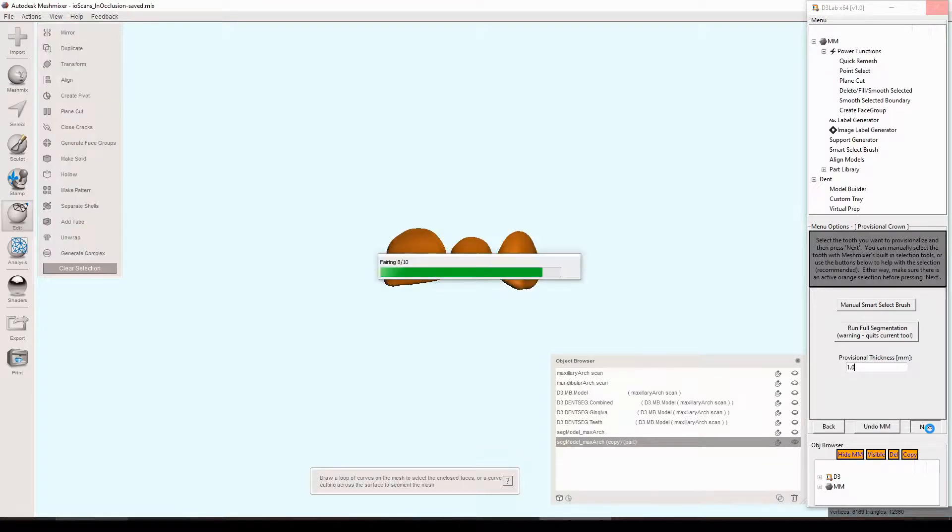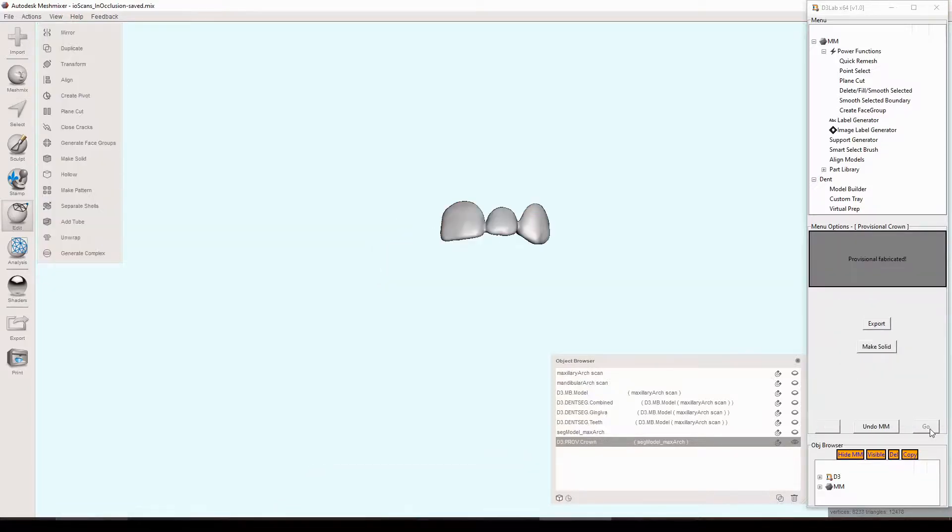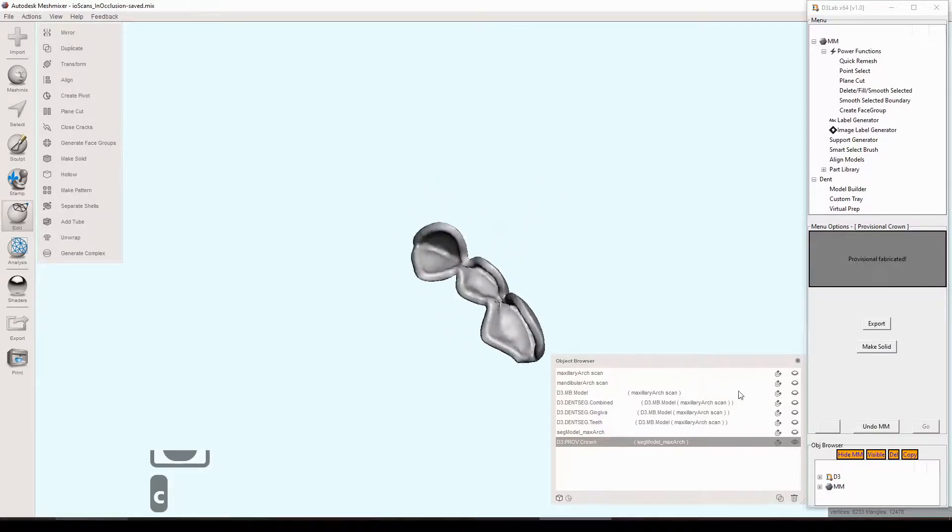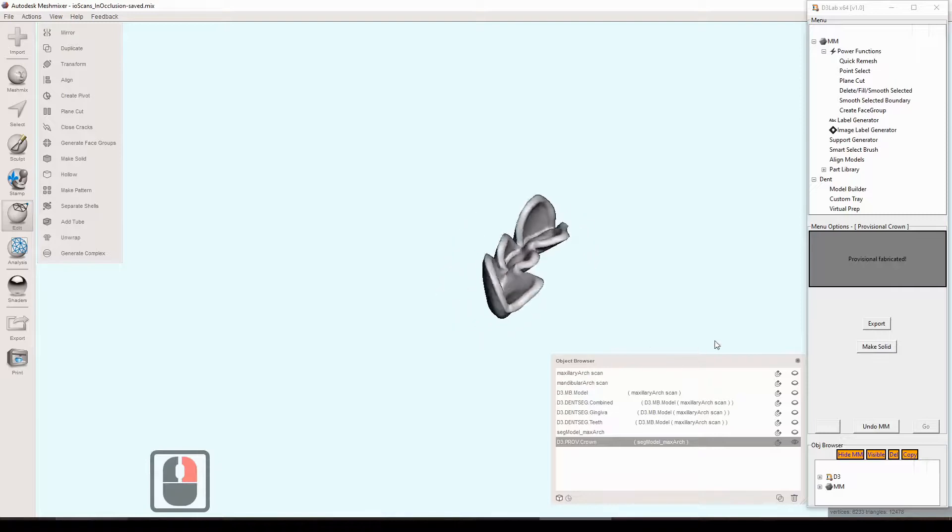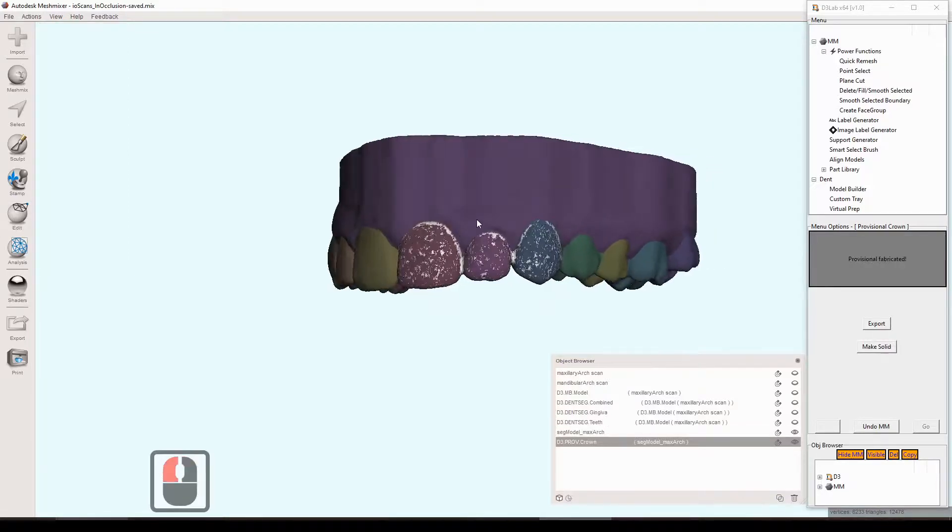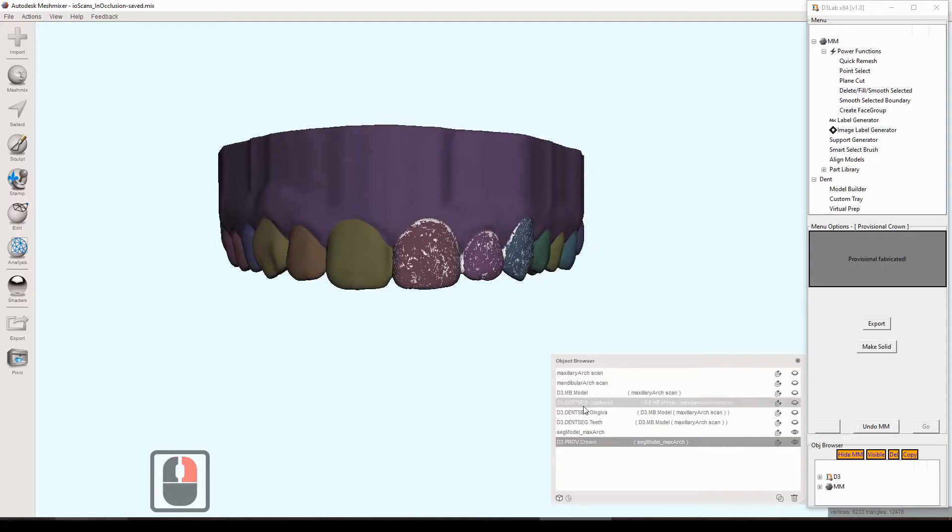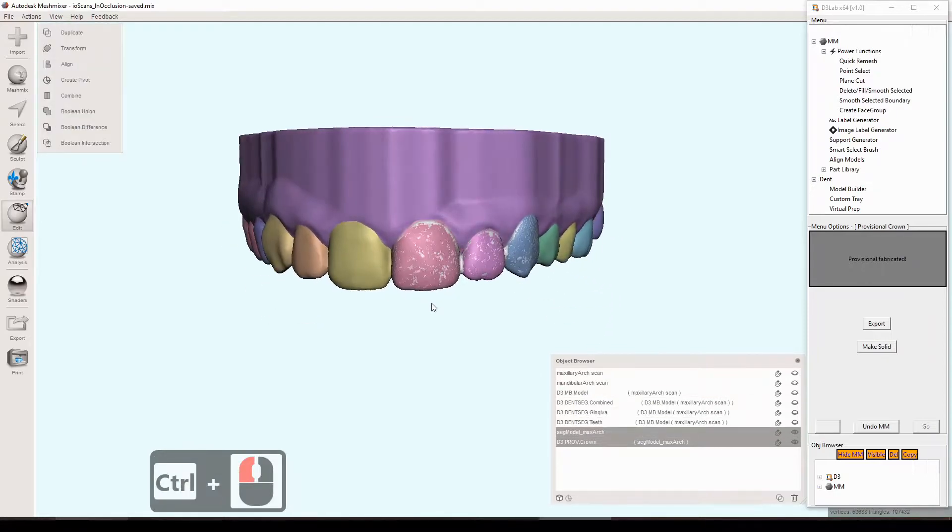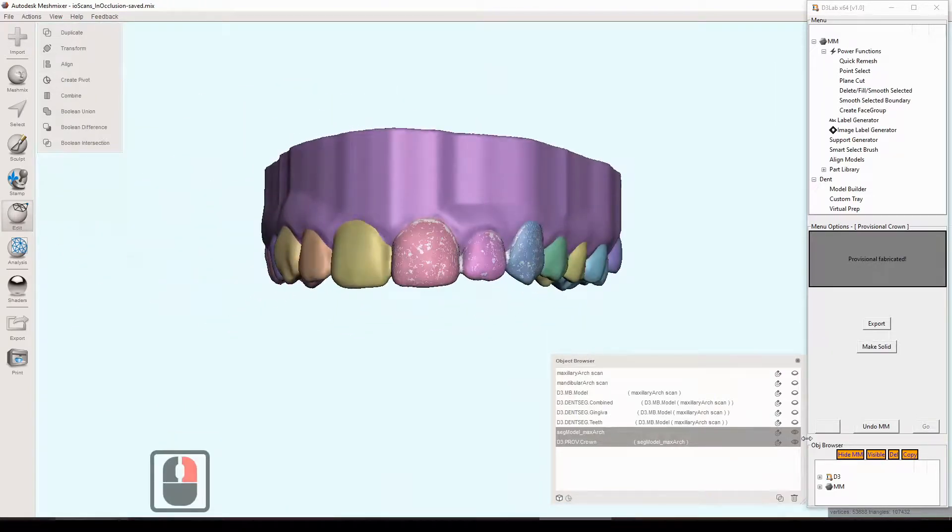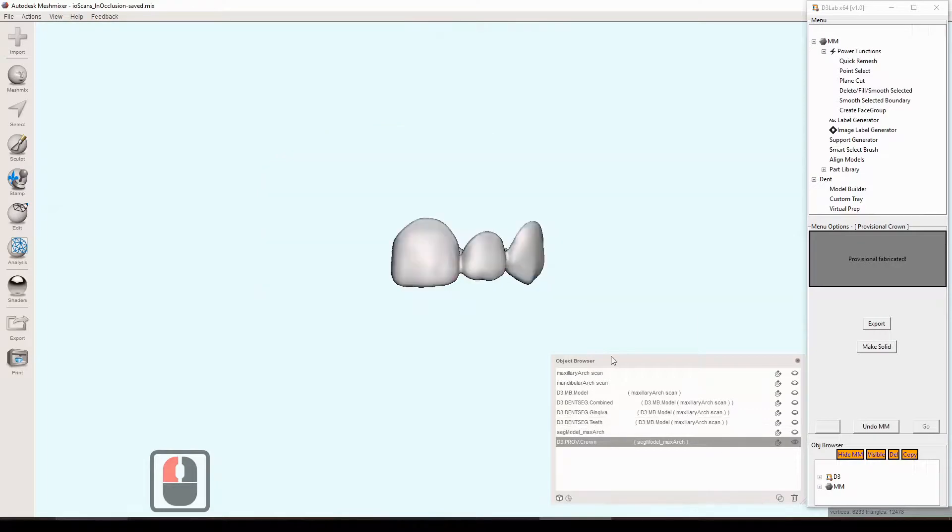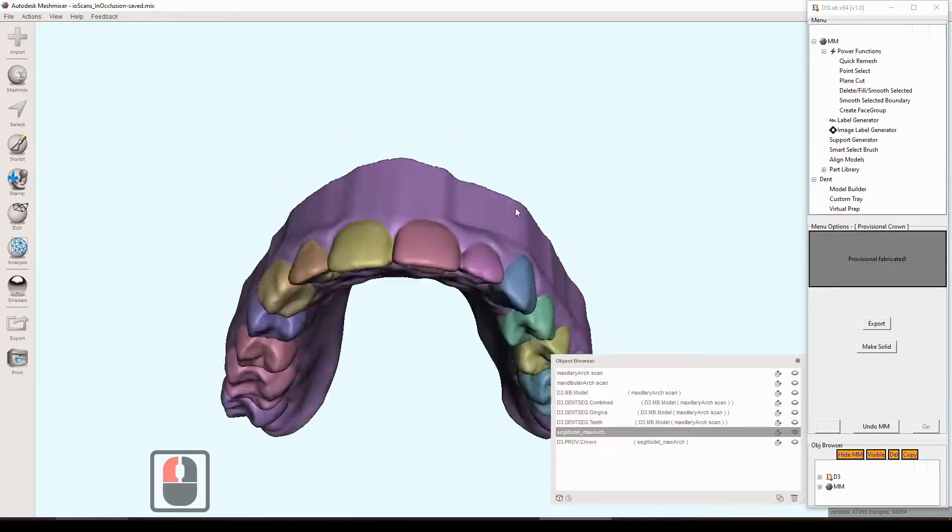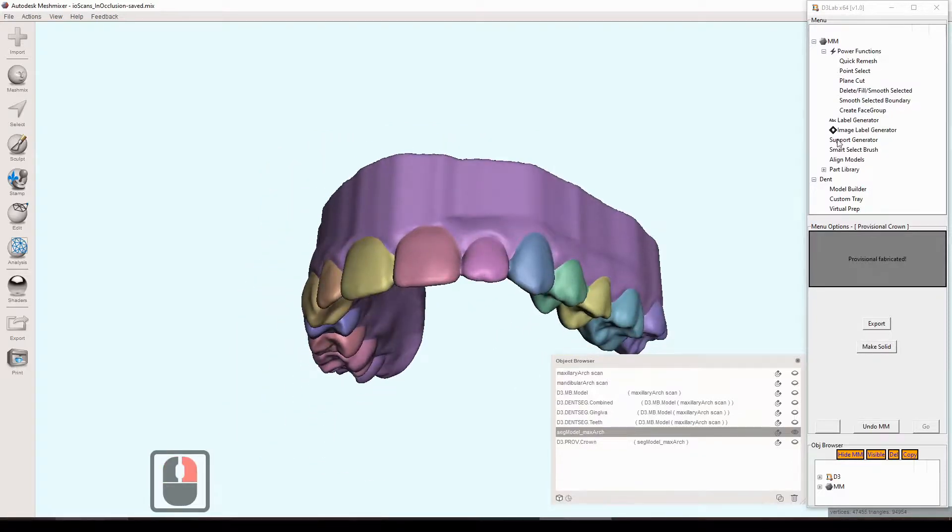Runs through some steps here and ends up with a made solid final model here. So it's ready to 3D print. And it's basically just an offset shell of the original model. And you can see it overlaid here. It's got that nice checkered pattern, which means it's a really good exact kind of duplicate of that exterior anatomy. So that's great. It helps with aesthetics, helps with occlusion and things like that. Intaglio clearly would have to be relined. But it's again a great starting point there.